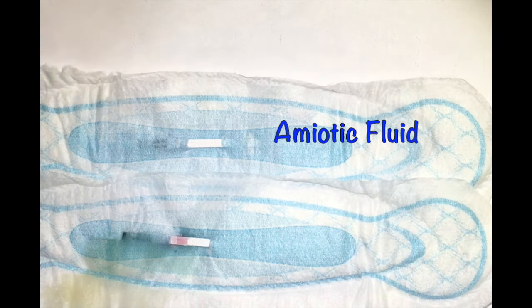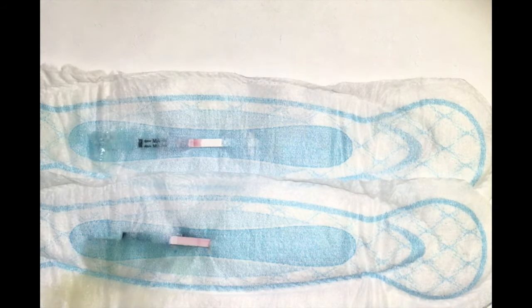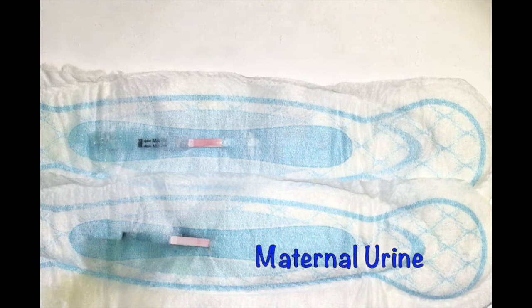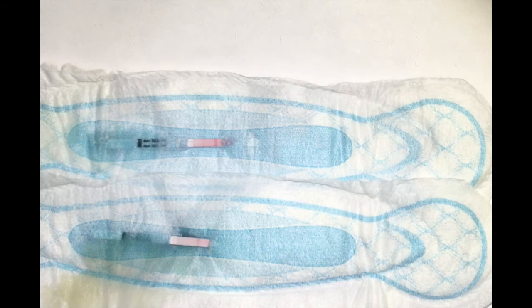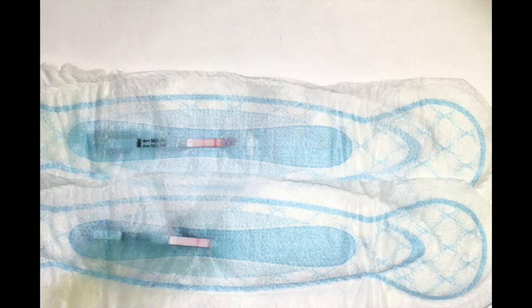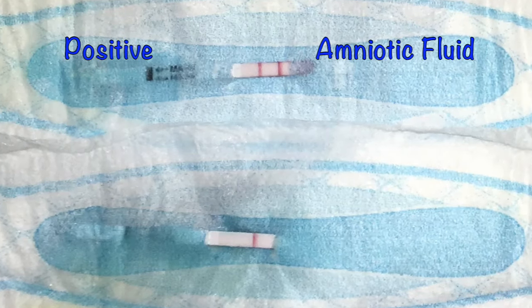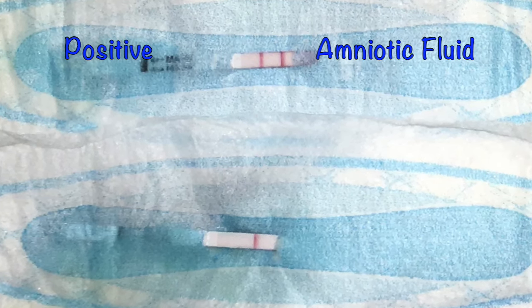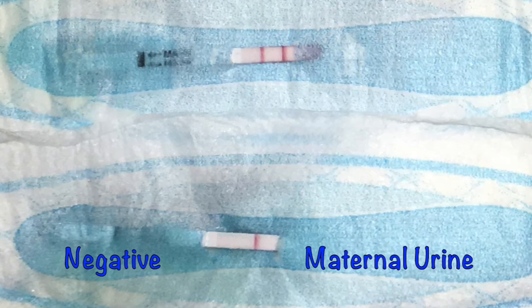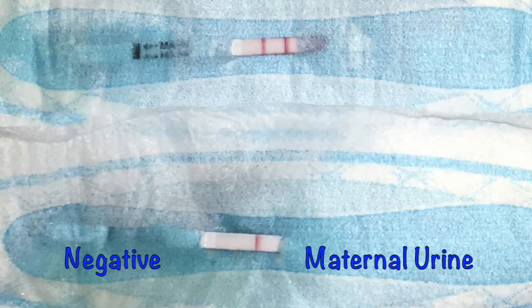In the following clip, amniotic fluid is instilled into the pad at the top and maternal urine is instilled into the pad at the bottom. A positive assay result is shown following the instillation of amniotic fluid, and a negative result is shown following the instillation of maternal urine.